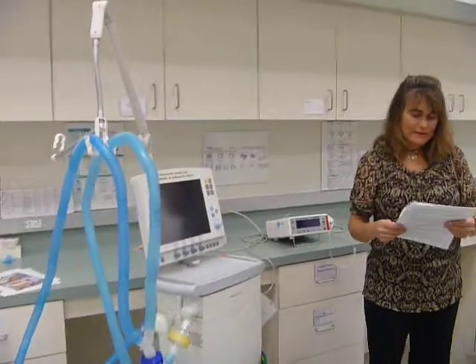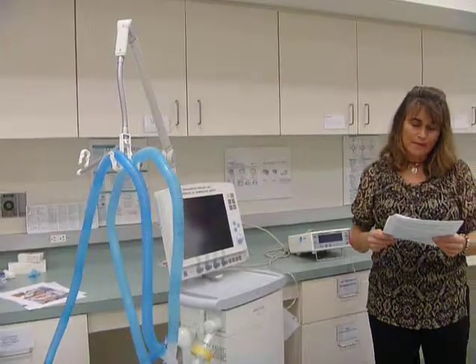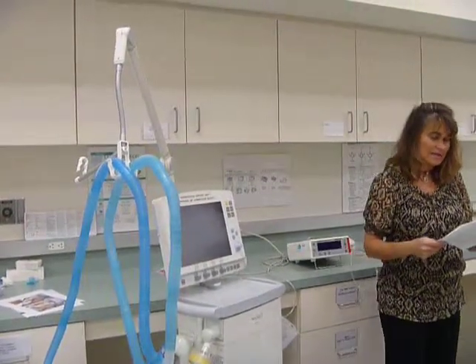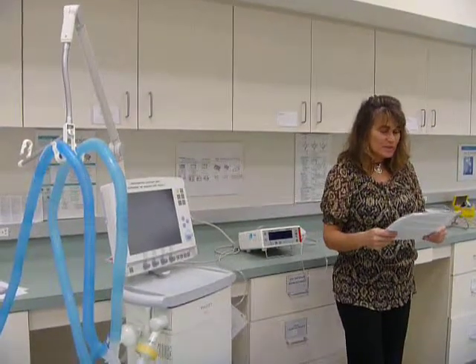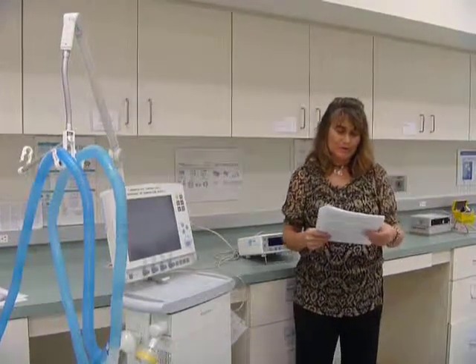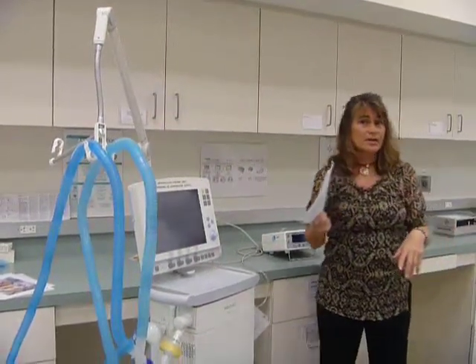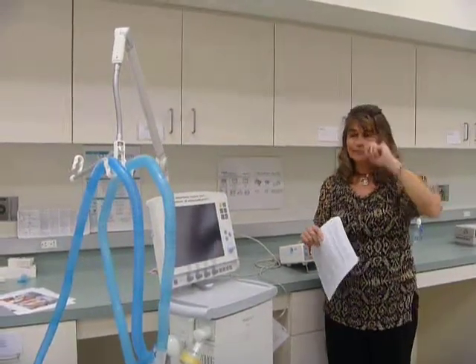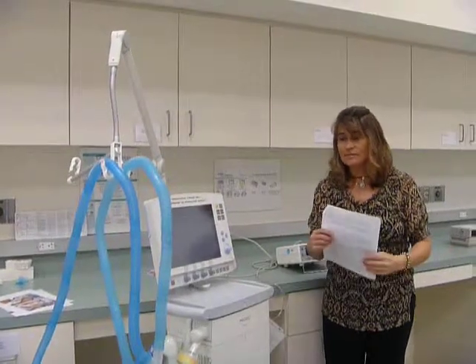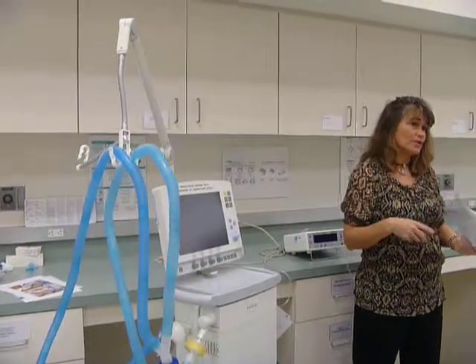How often should a ventilator circuit be changed? The Center for Disease Control recommends the circuit be changed on an as-needed basis, which is abbreviated PRN. If the circuit is visibly soiled, it is recommended that the circuit be changed. All right, so the hospitals that you go to will have a policy for when the circuit gets changed. Usually it's 30 days. Or if it's contaminated. So if you see mucus in the circuit, it's usually what contaminates it. Sometimes patients cough up blood and blood gets in the circuit. In that case, you change the circuit.